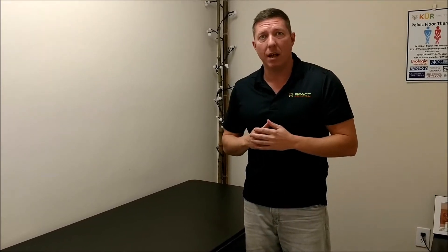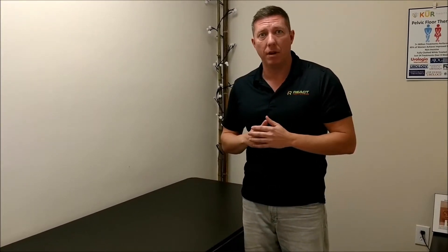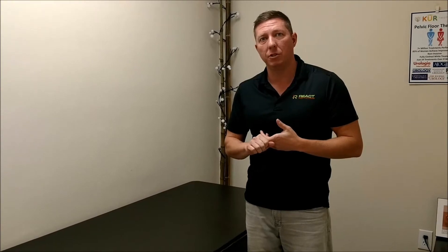It's really an amazing technology that can be used for a variety of different ailments, including pain management, increasing blood flow, managing atrophy, and performing muscle re-education post-injury.